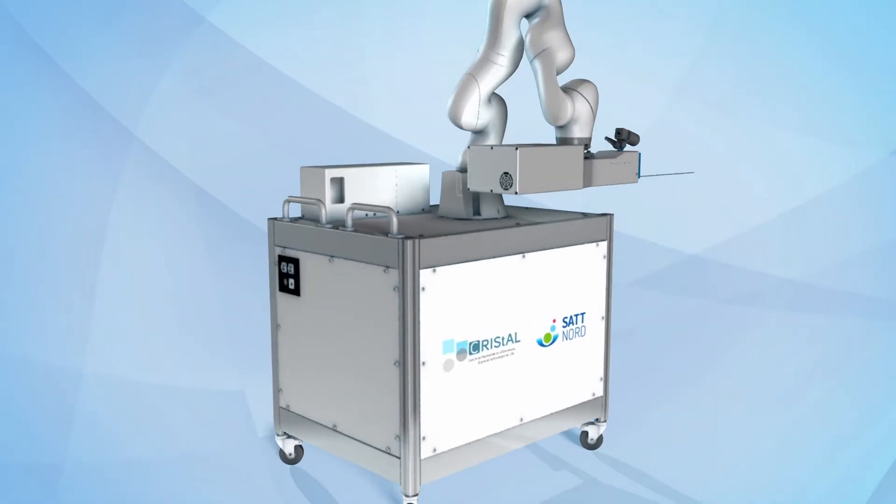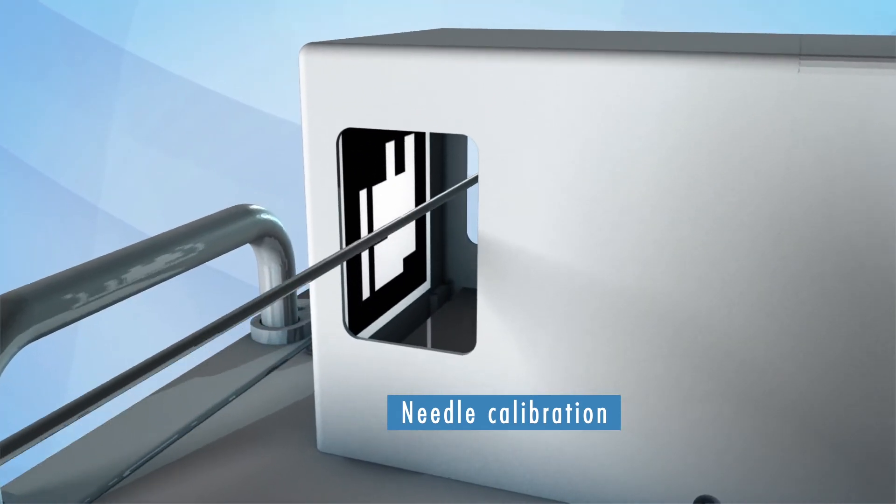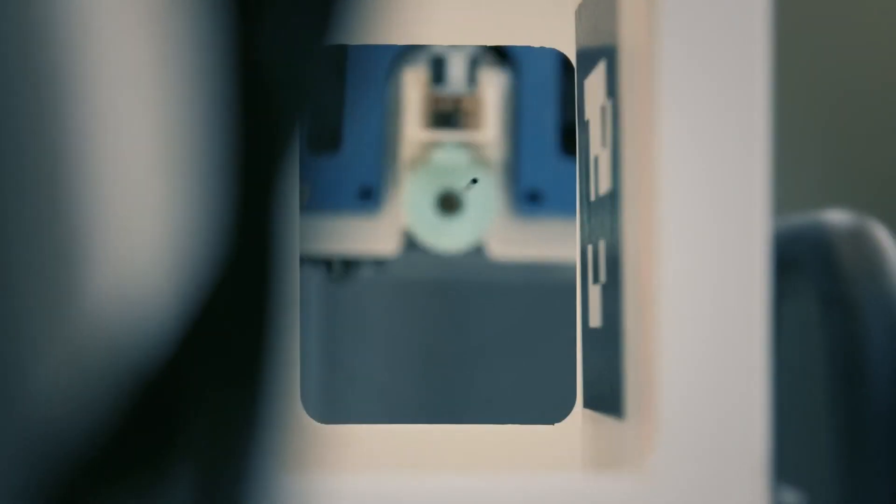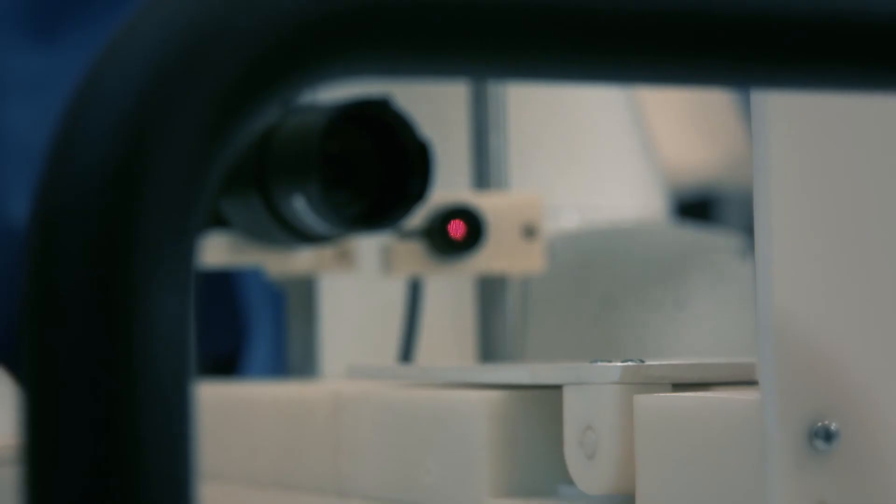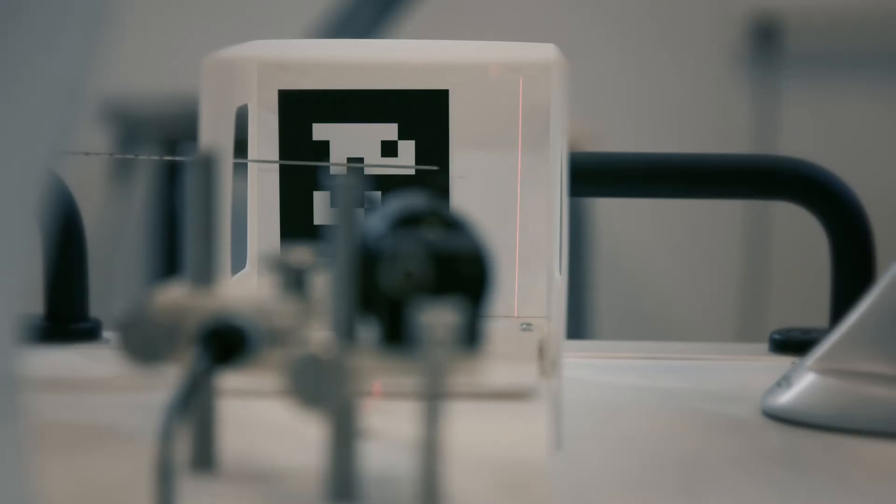An algorithm has been developed to identify the absolute coordinate of the center of tool, which represents the extremity of the needle. This algorithm is linked to a measurement system composed of a laser pointer associated to a camera and QR code to automatically calibrate the needle.